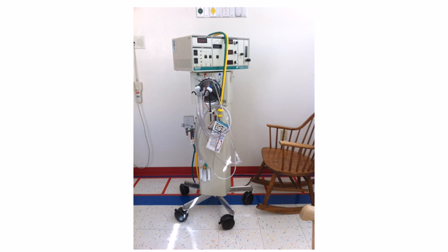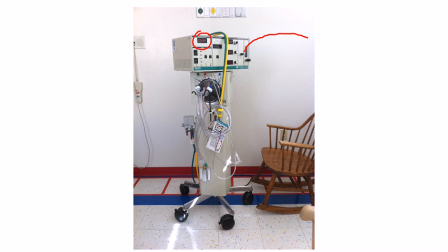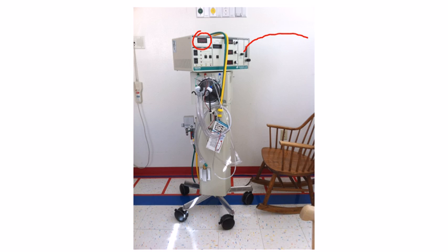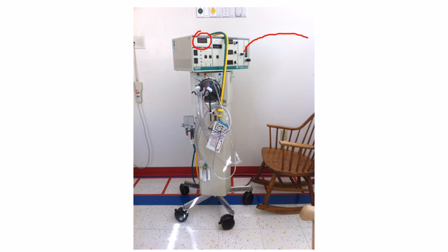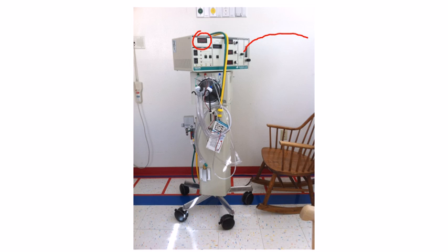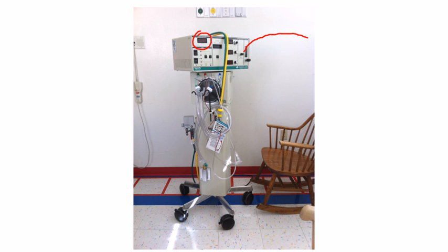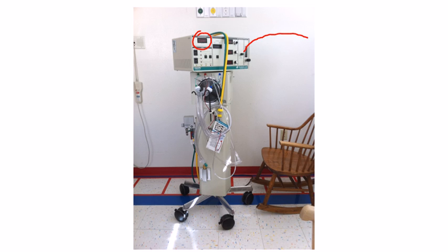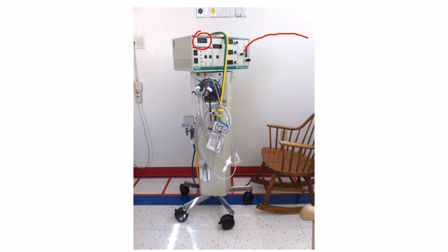The big thing we're looking at with oscillation is that mean airway pressure. I didn't really talk about this in the last video, but that mean airway pressure is really the biggest determinant of oxygenation in our patients. Mean airway pressure is sort of like PEEP — it does the same thing as PEEP in conventional ventilation. It's kind of the average pressure that's always in the airway, a pressure that keeps the alveoli open, keeps them recruited, keeps them from collapsing, and allows for diffusion of oxygen across the alveolar capillary membrane.